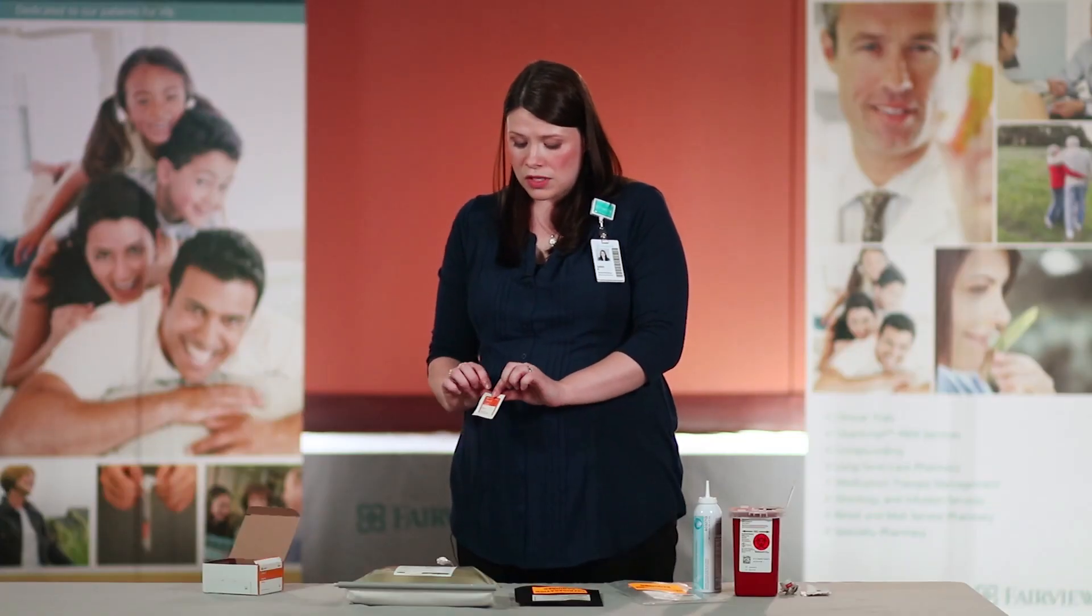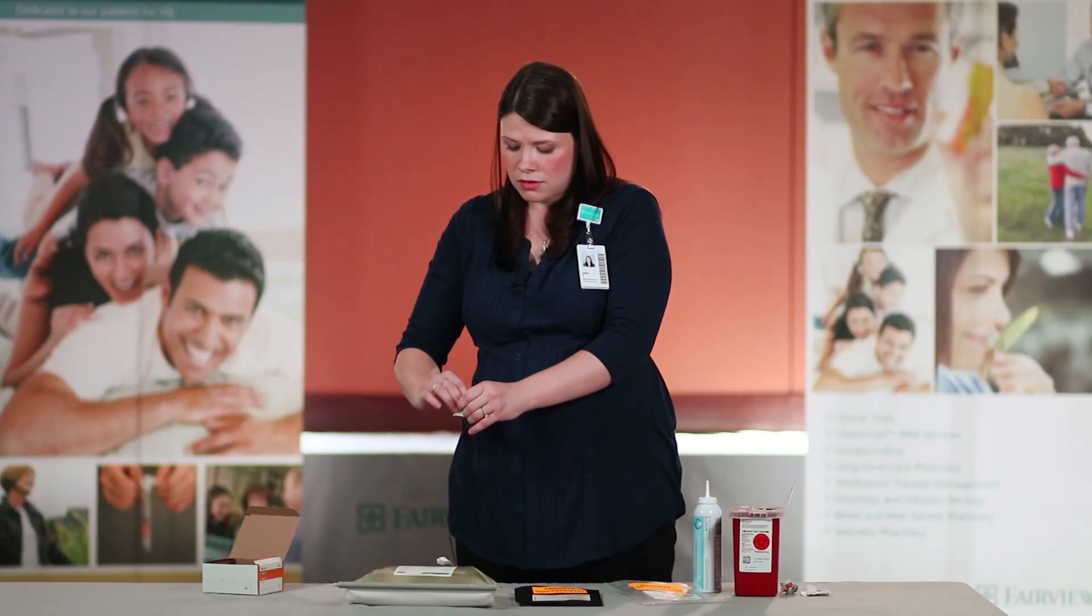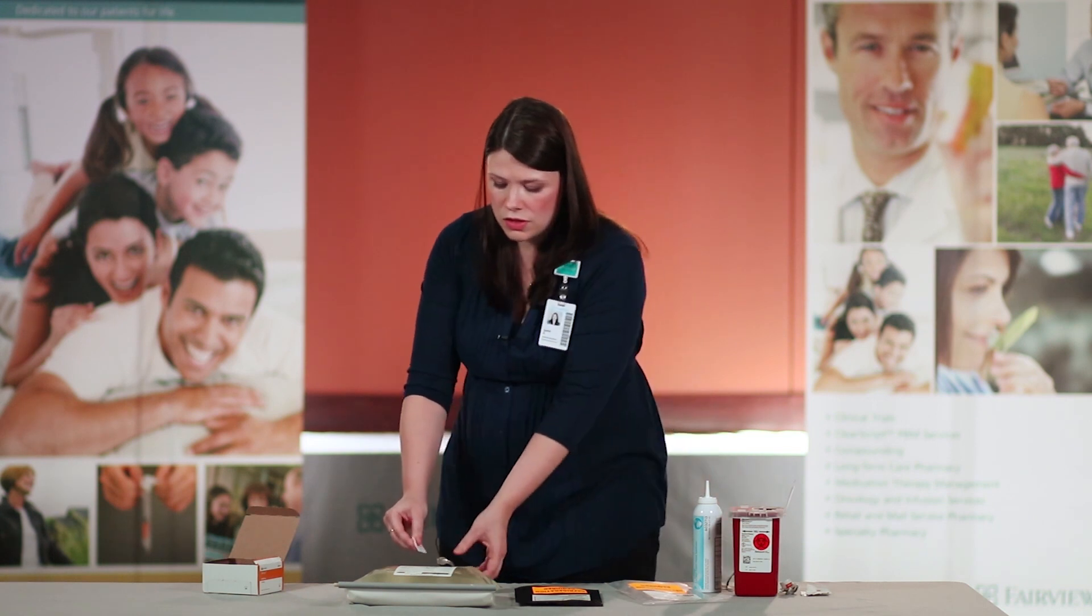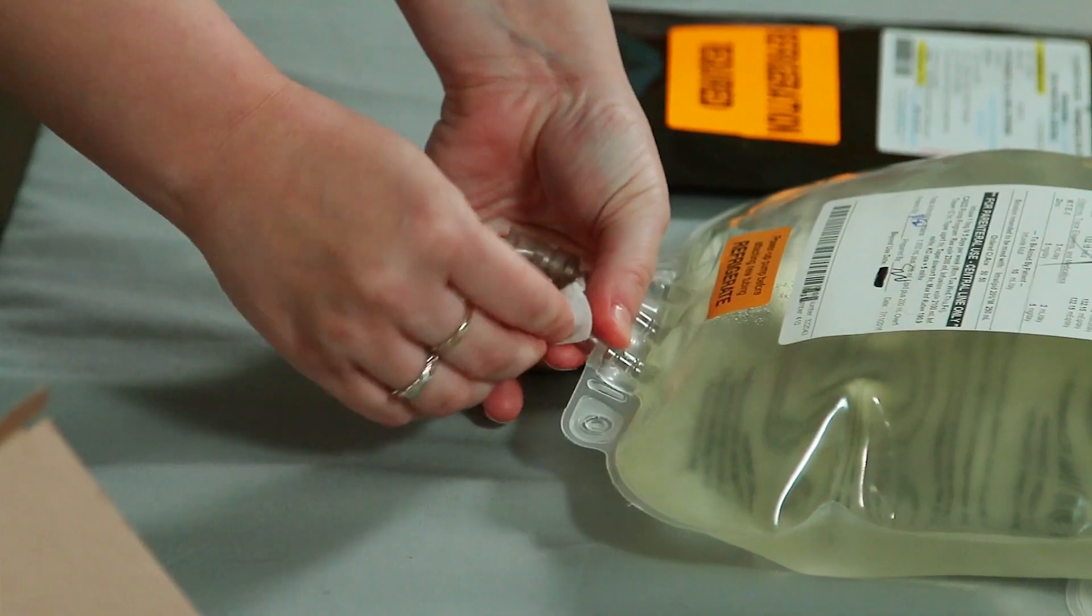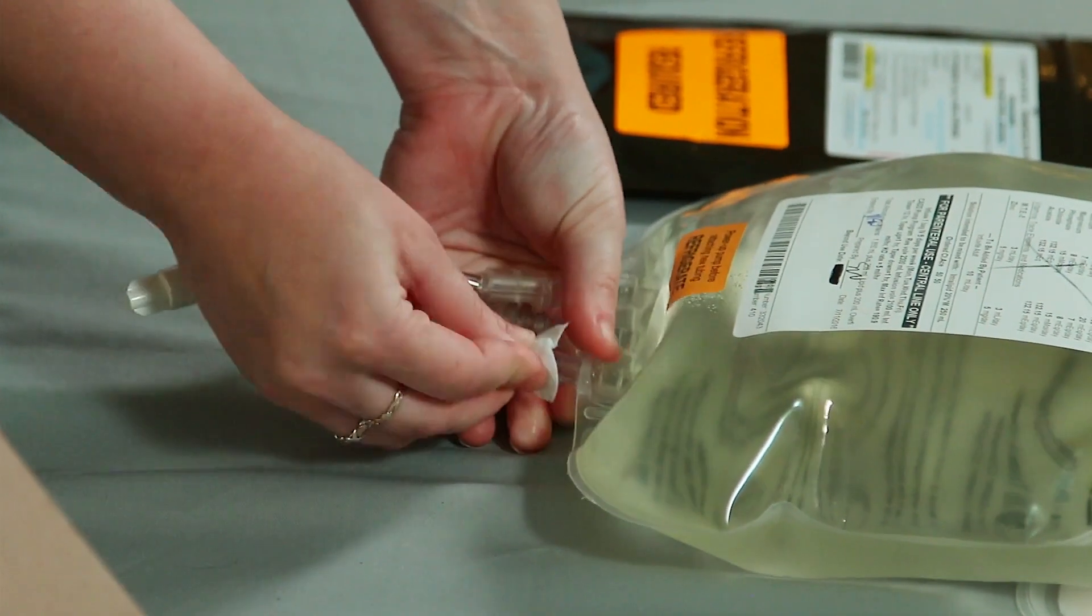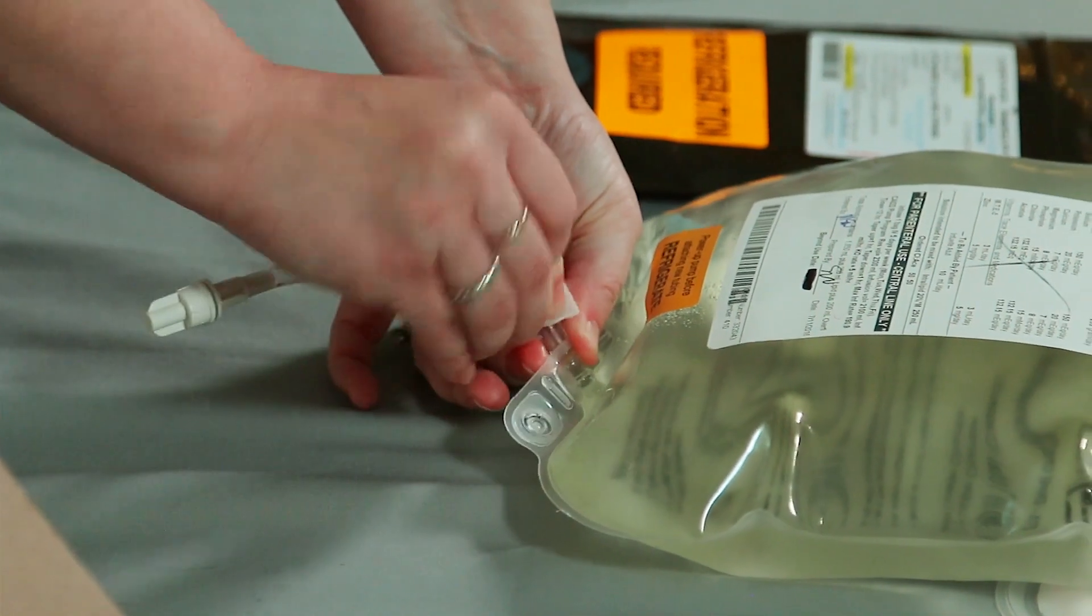To start, use a fresh alcohol prep pad to scrub the port on your TPN bag using good friction and scrubbing for 15 seconds.